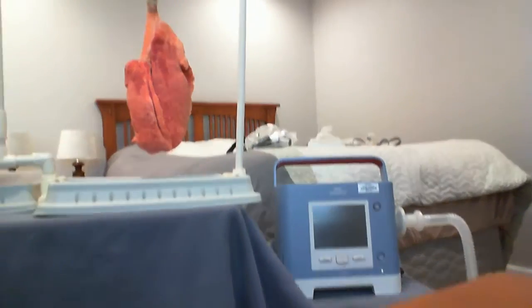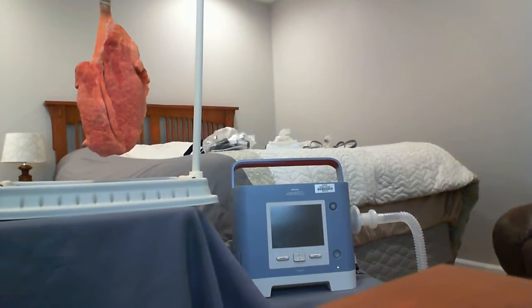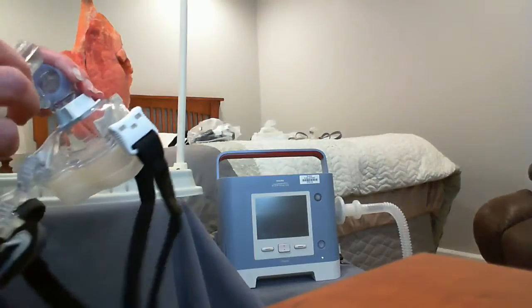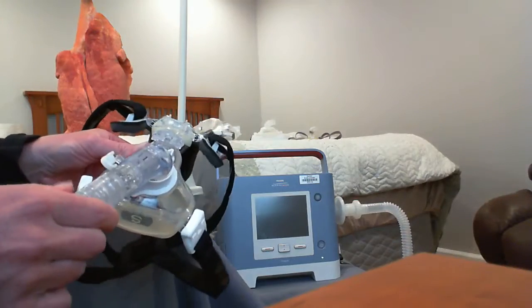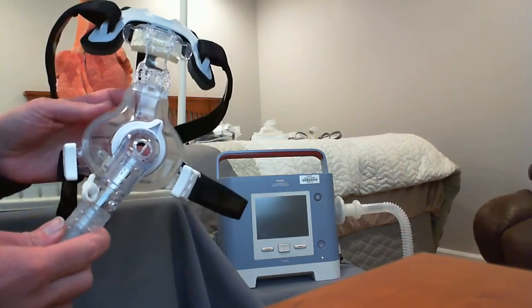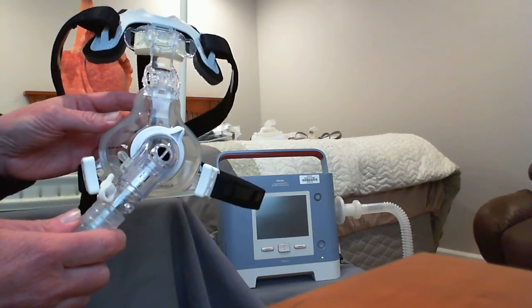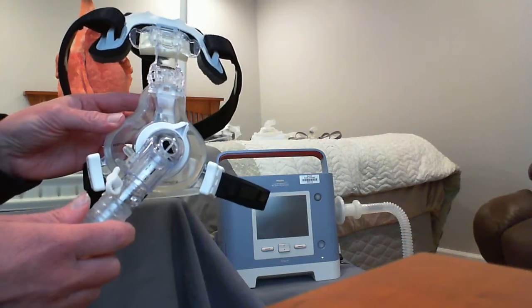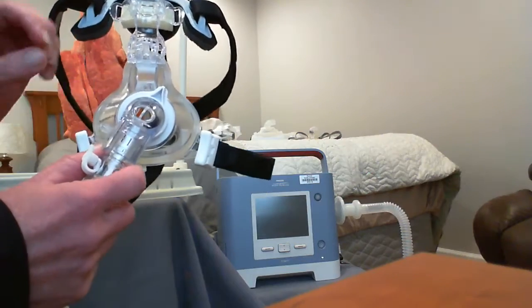An example of a patient that we are going to start ventilating. So I have a ventilator here called the Trilogy, and it can be used as a non-invasive ventilator. It would go on the patient's face, and then you could use this for either CPAP or BiPAP, which we really should call bi-level, BiPAP is a trade name. But if we do need to convert this to an invasive ventilator, I'm going to show you how.